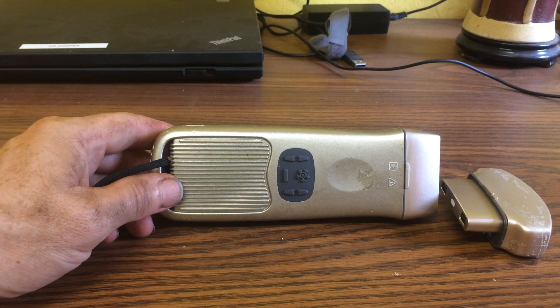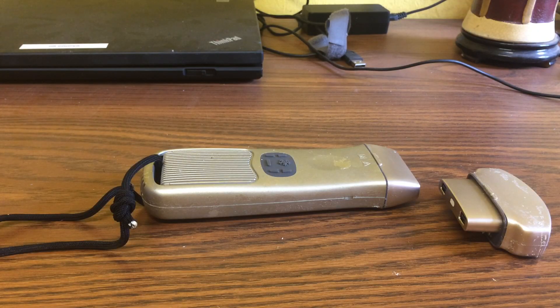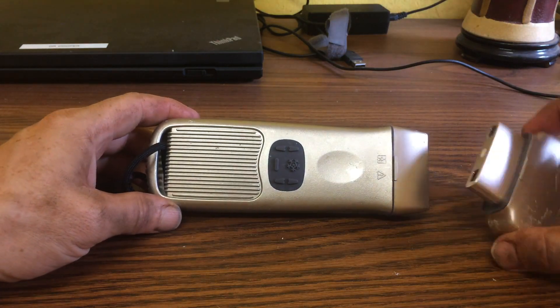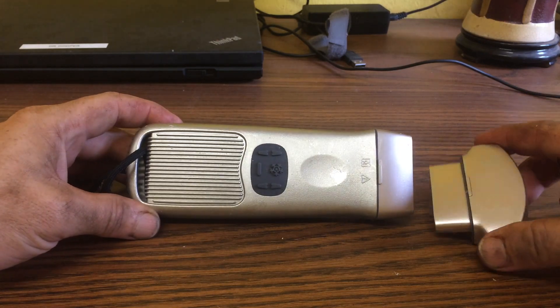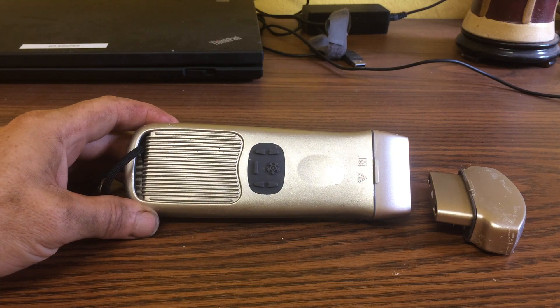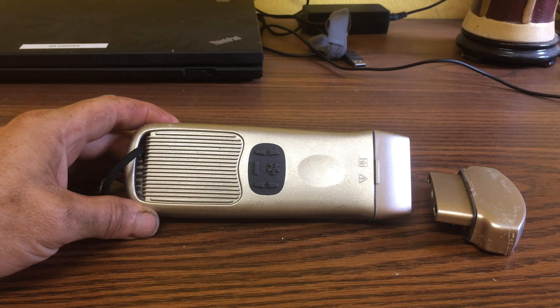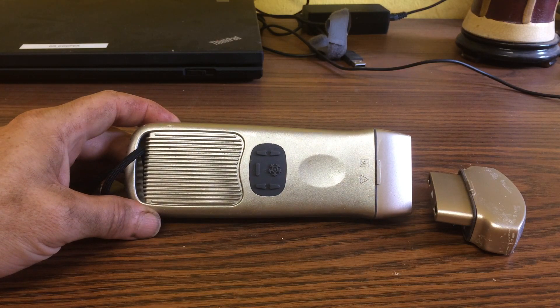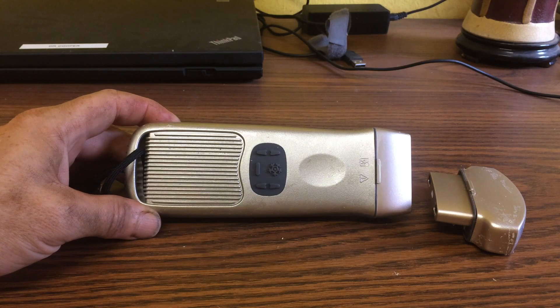Initially I thought I was getting a system with color, but no such luck — this cheaper version is only black and white. The color option costs about twice as much. I paid about $3,000 for this unit and $300 for the extra heads, so $3,000 gets you one head and then $300 for each additional head. I bought it from the same company on eBay, ChenMa79200, and it was shipped in a timely manner, professionally done — I was impressed with how it arrived.